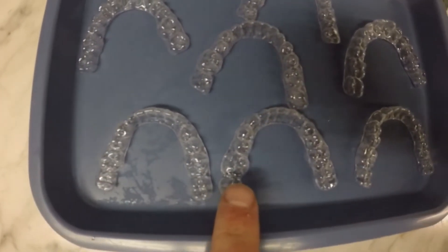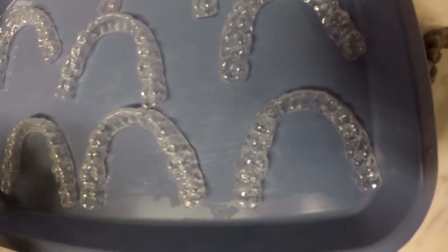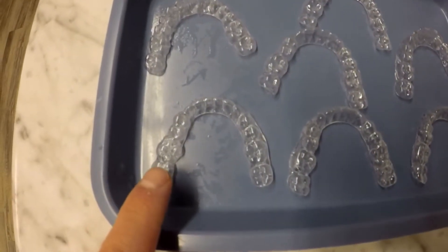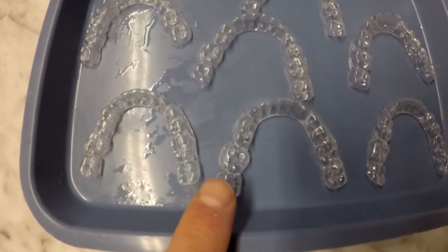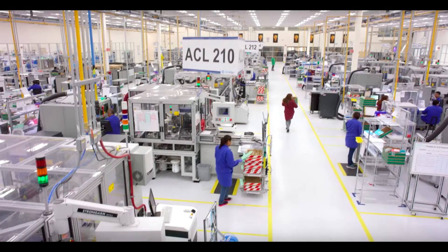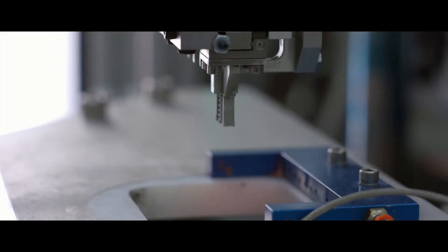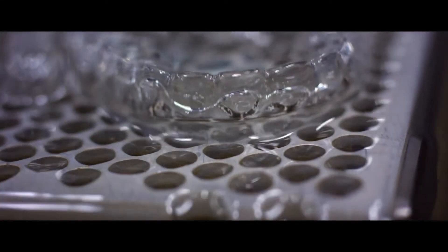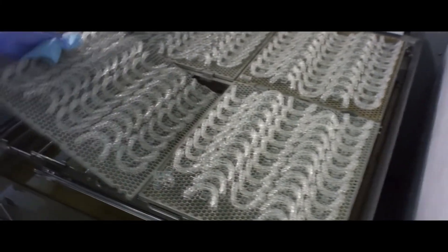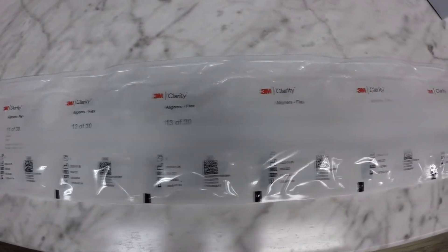So now you have a series of aligners that will sequentially move teeth. That one, that one, and that one — that's the patient we showed you before where that molar is moving just a little bit. Whenever he puts these aligners in, each aligner is going to move that molar just a little bit and get it straighter. I'm showing you how to do this manually for learning purposes, but the big companies have factories that basically automate all of this, and many now have the capability to print the aligners directly without the model-making step. When they send them back to us, they come in a series of aligners all packaged up and neat.